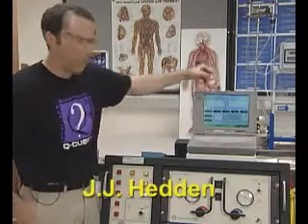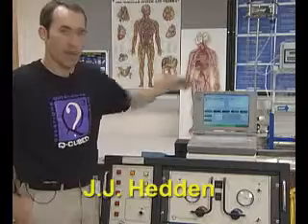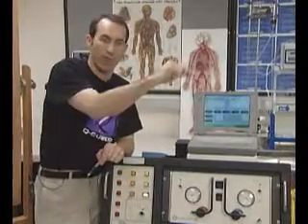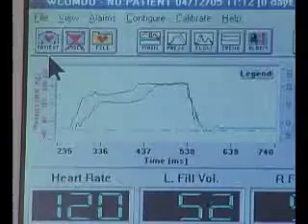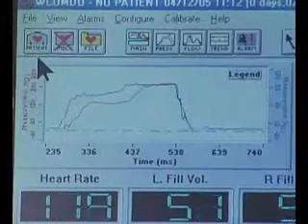The graphs that you see at the top are vitally important — we reference these all the time when we're looking at patients, how they're doing and what they're doing. Really, what these graphs capture is the airflow that's coming out of the console, back in and out. This is the airflow that we're capturing.